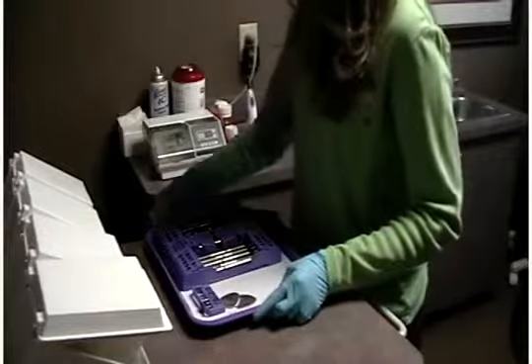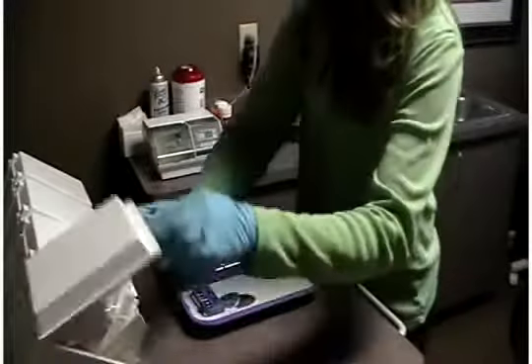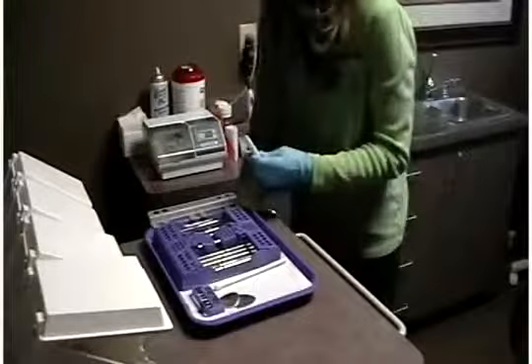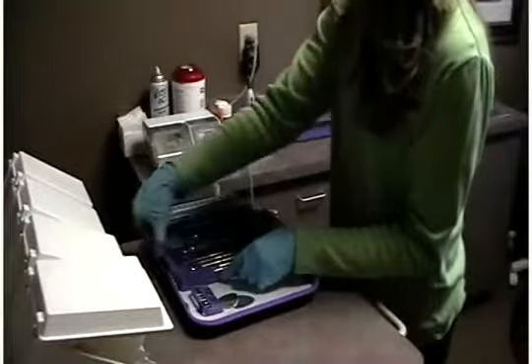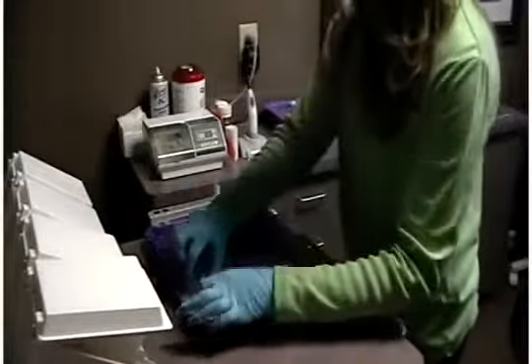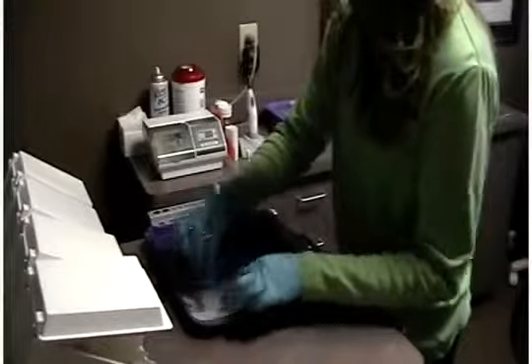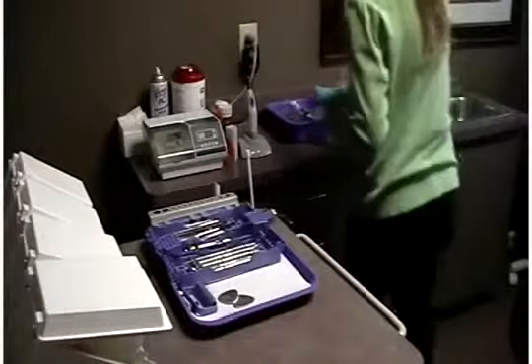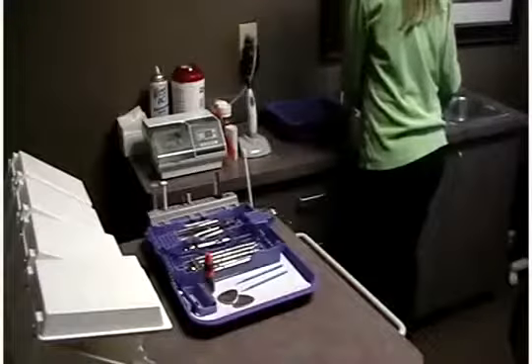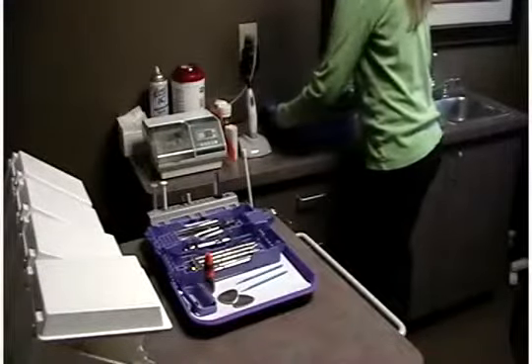Begin setting up your chair-side workspace by placing your commonly used items from the operatory drawers and your other items from the tub onto your tray. You should only pull the materials you will use from the tub. Set the tub cover back on, but do not lock it. This will prevent aerosols from settling on your materials. However, all materials will still be easily accessible should you need additional items.